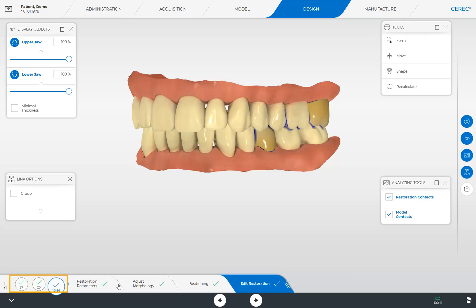The different positions of our restorations are displayed to the left of them. These include the single restorations as well as a bridge restoration. A further restoration can be found behind the label 'plus one.' In the Restoration Parameters step, you can adjust the parameters of the currently selected restoration. These are the local restoration parameters, not the global ones, which are found in the system menu. Customized parameters from this step will not be saved permanently, and the CEREC software will apply the new settings only to the current restoration.